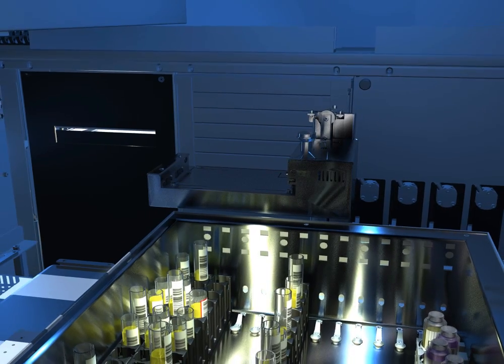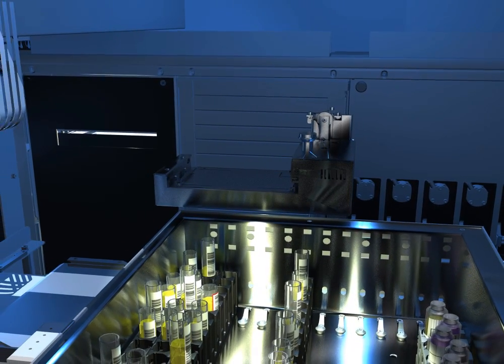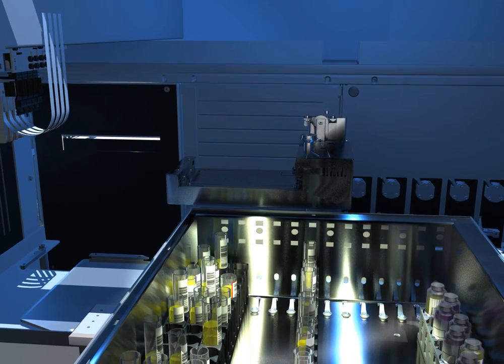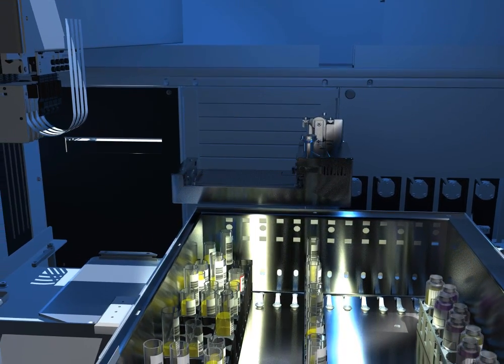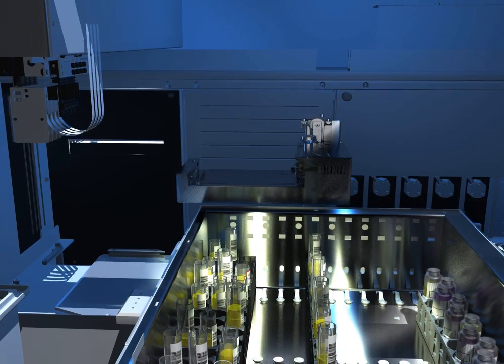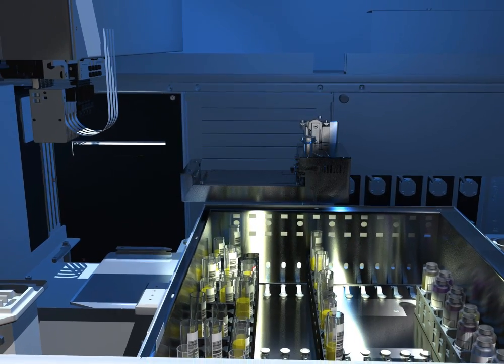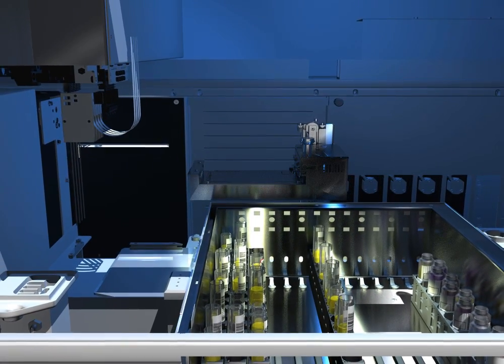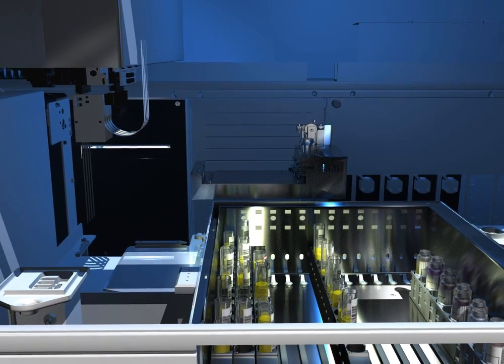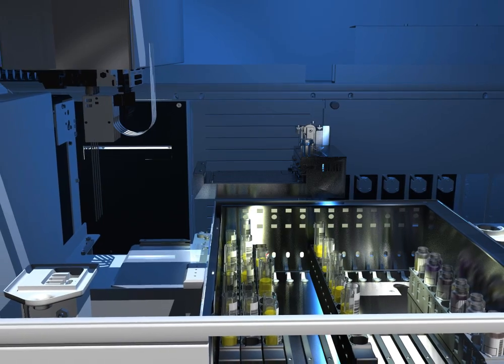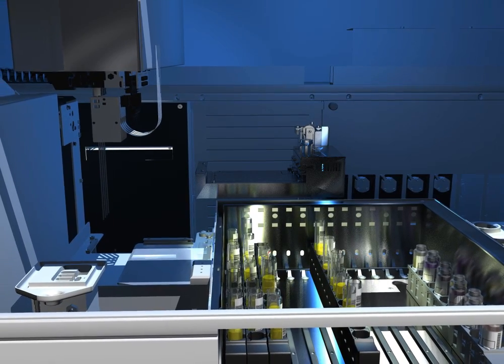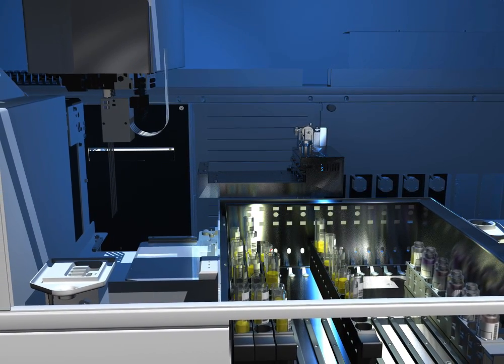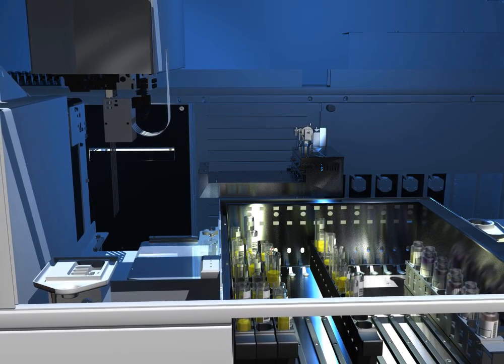Because NEO can accommodate up to 15 microplates at one time and incubation is the longest step in the test process, we match the number of incubation bays to the microplate tower capacity. We designed NEO so that there are no bottlenecks throughout the testing process.